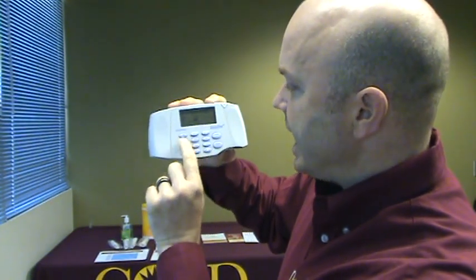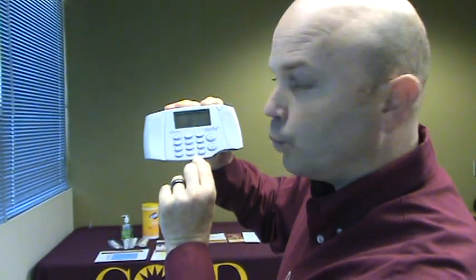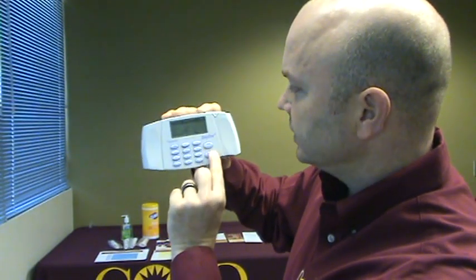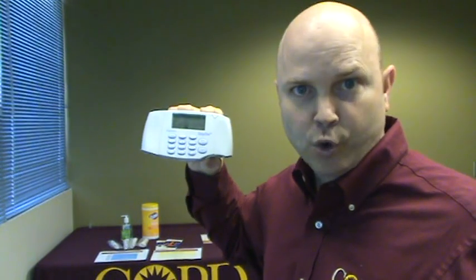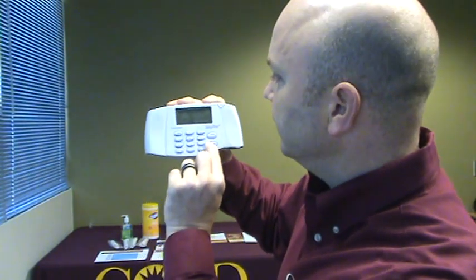Next field is height, which will be in feet and inches — for example, five foot six inches. Press enter after each value. Weight does not need to be recorded; it does not matter for the percent predicted categories, so you can skip it and do not need to ask this of the participant.